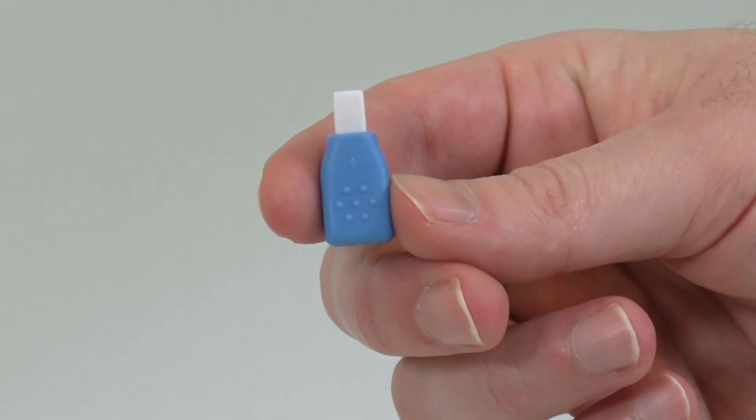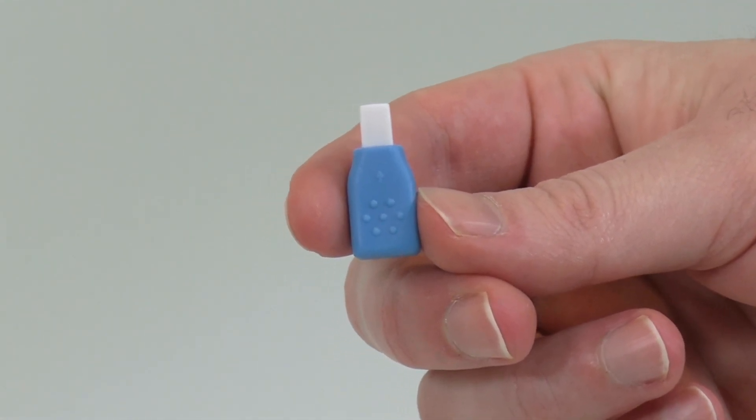Ensure to not misplace the tester, as this allows you to test if the unit is in working order.